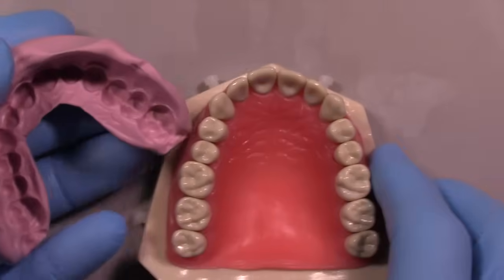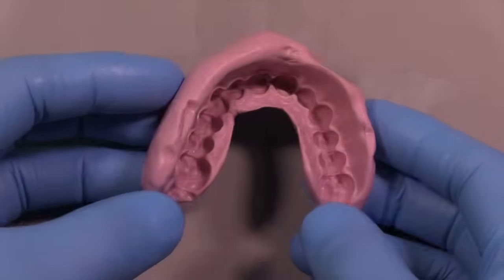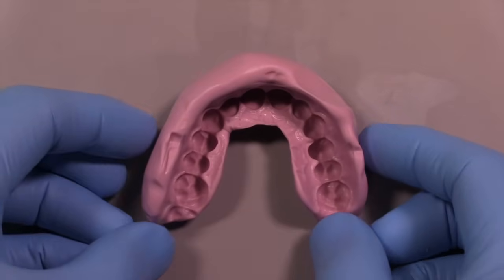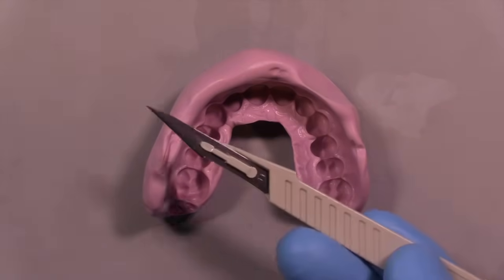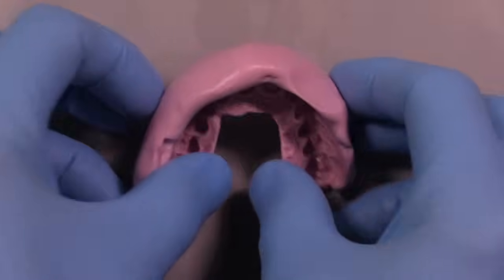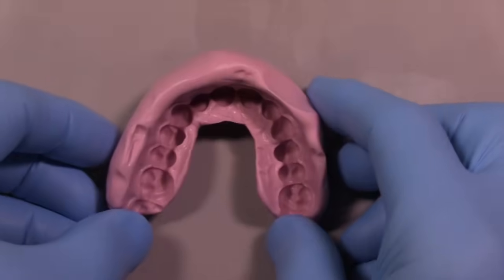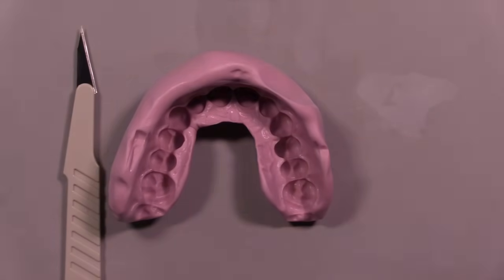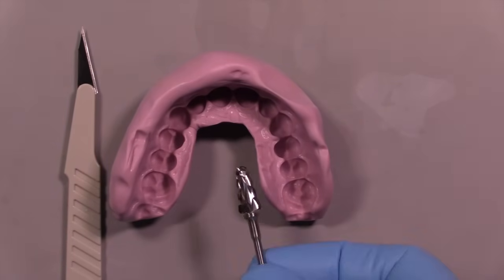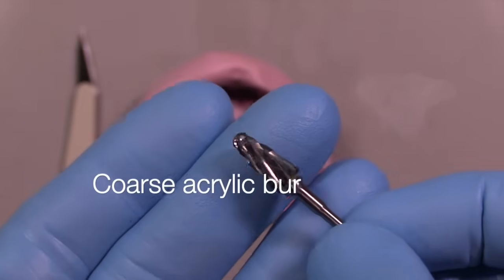When we shape it into this U-shape that is relatively smooth, you always have to remember that this has to go into the patient's mouth. This is not something that should be made in a bulky way. So many of the prep guides and provisional stents I see posted on the internet or shown in other lectures have very little regard for the patient — these huge bulky contraptions are tried to be placed in the patient's mouth when in fact that just doesn't work. One of the things I know from doing these for over 30 years is that you need to make things patient-friendly.